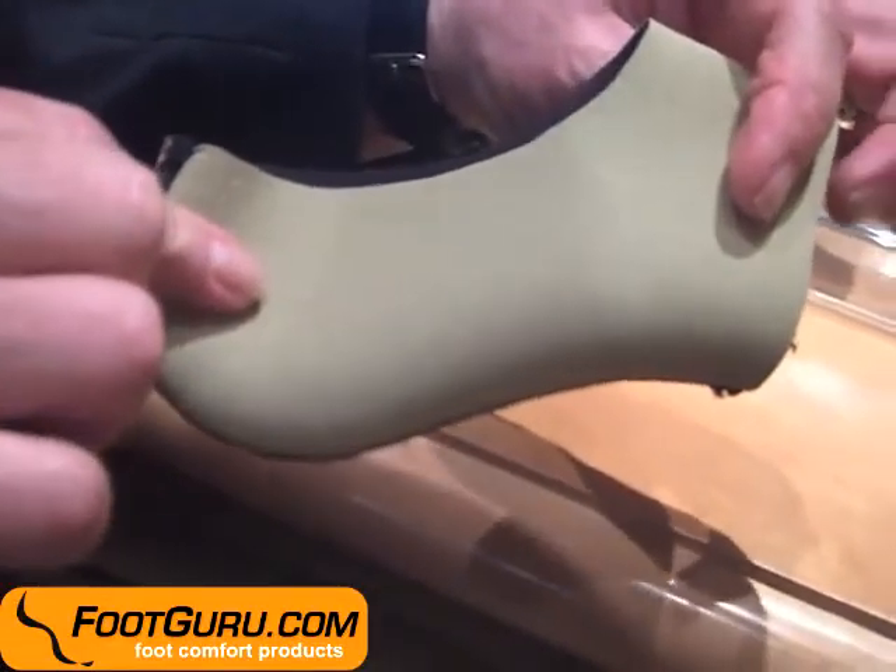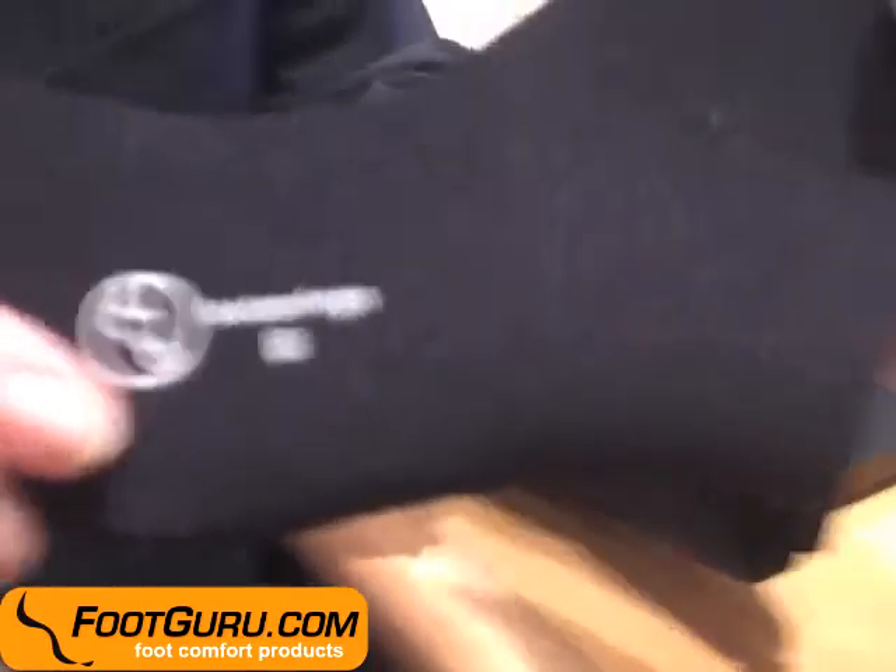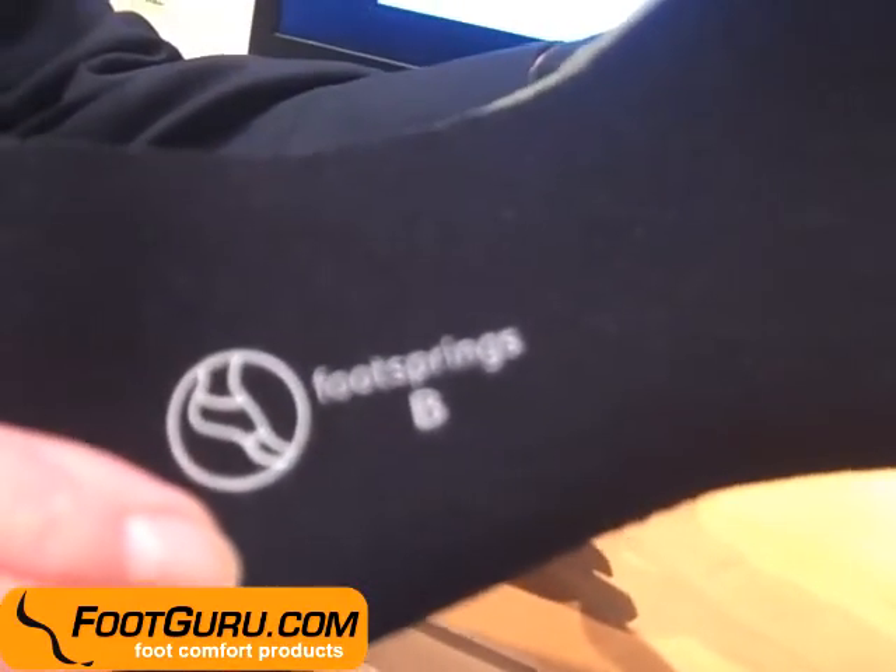The product is reversible — it can be used either side out, with sandals or barefoot. It can be used inside or outside the shoe, under or over the sock, giving support to the foot, especially in athletic shoes or when you want to be active.